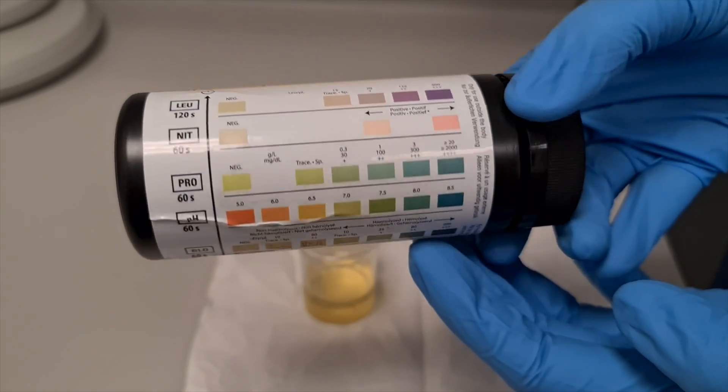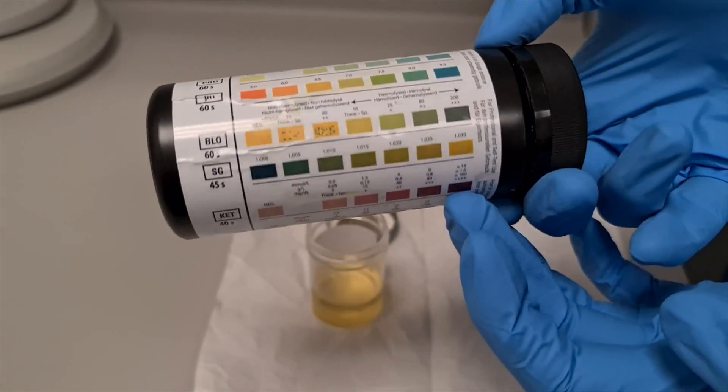We do urine dipstick tests all the time and they can be really useful, but you do need to know what you're looking at. So let's look at each part of the test in turn so that we understand what we're trying to assess from the urine dip.